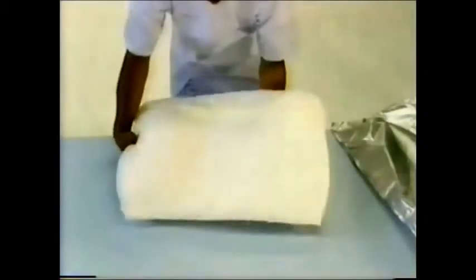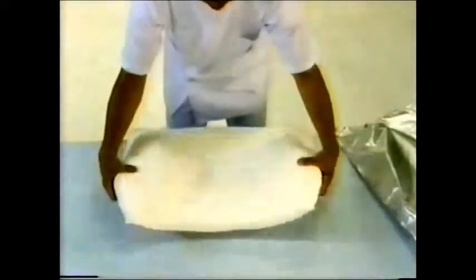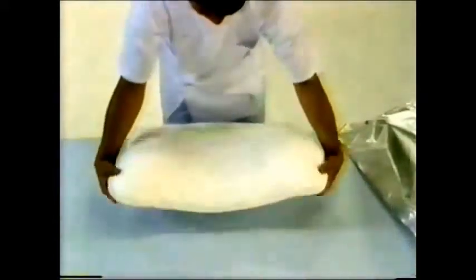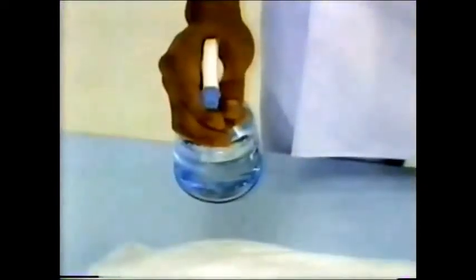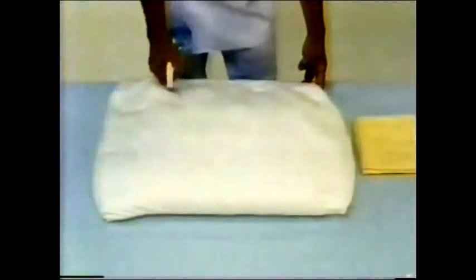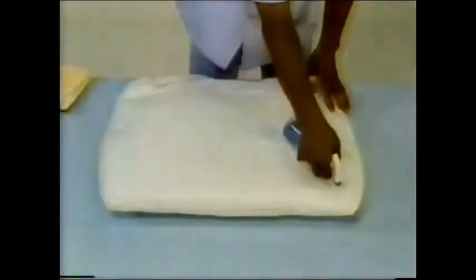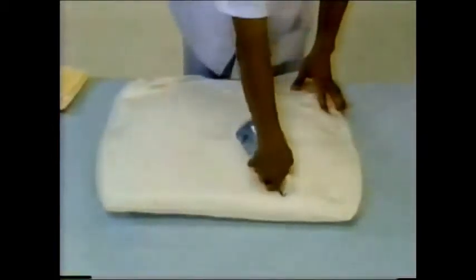The aluminum pack is opened and MoldCare RI-2 removed just prior to use. Before adding water, the device is flexible. Water is added using a spray gun and should be sprayed evenly on both sides. Because the cover material is treated with a water repellent, the device will only absorb water when applied by a spray gun.